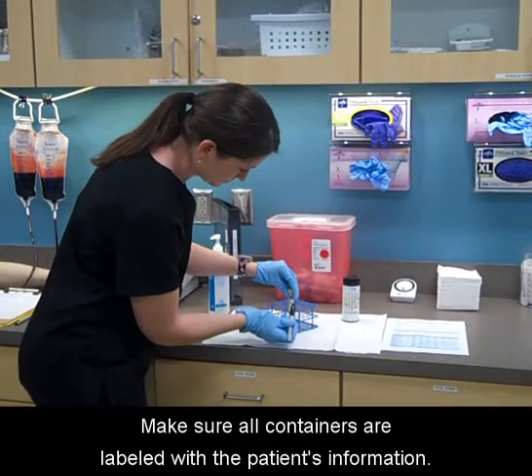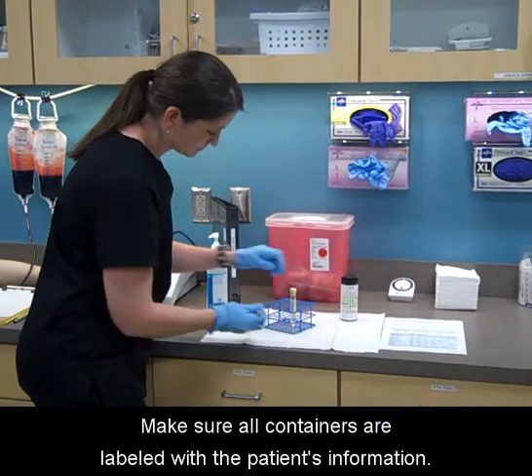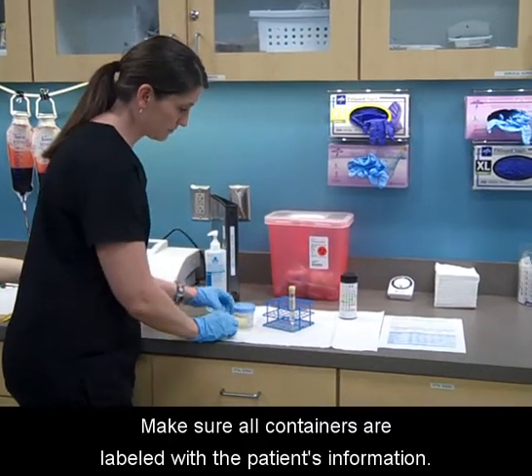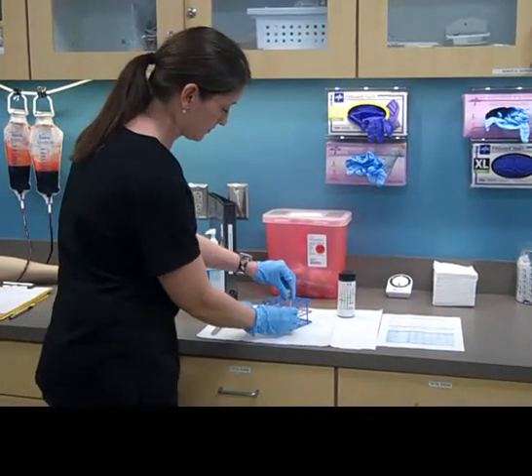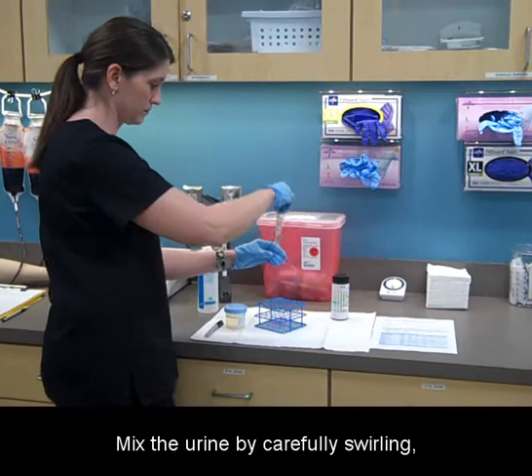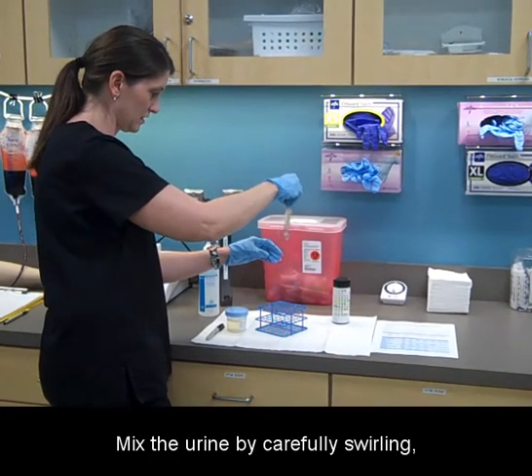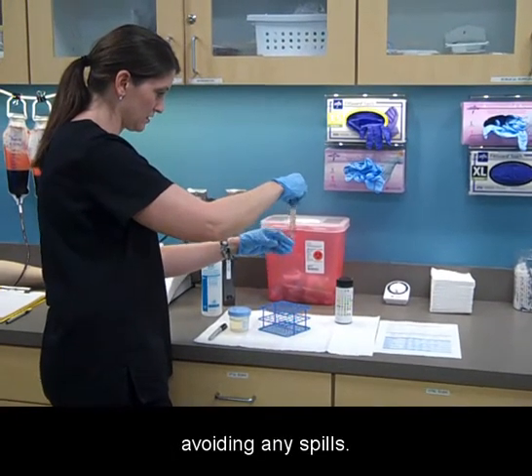Make sure all containers are labeled with the patient's information. Mix the urine by carefully swirling, avoiding any spills.